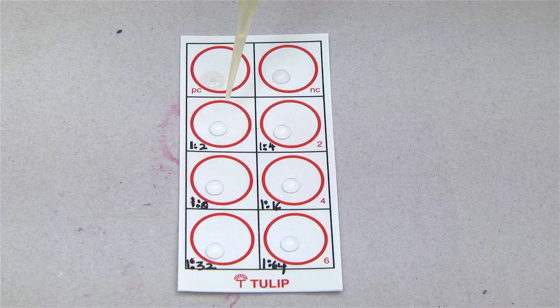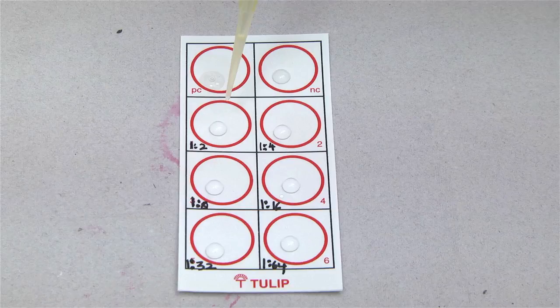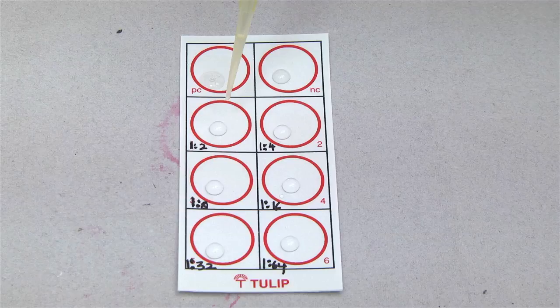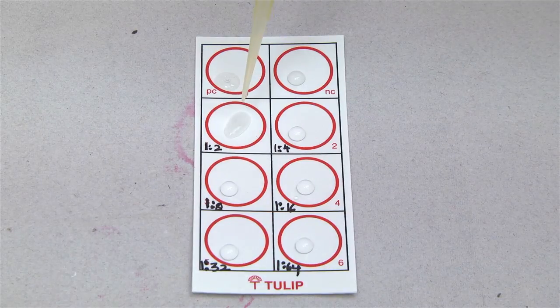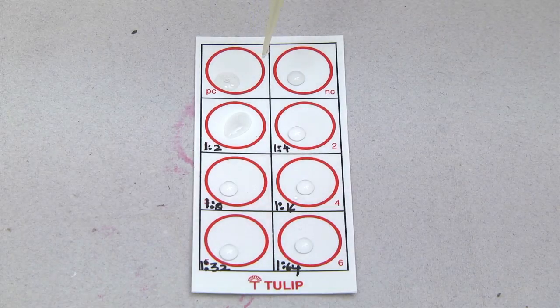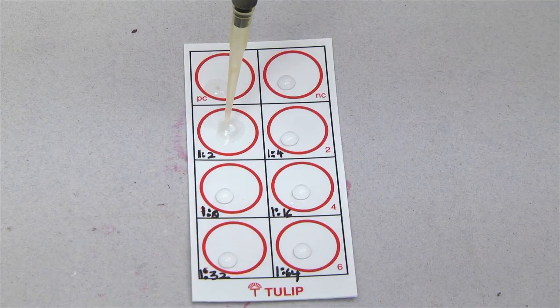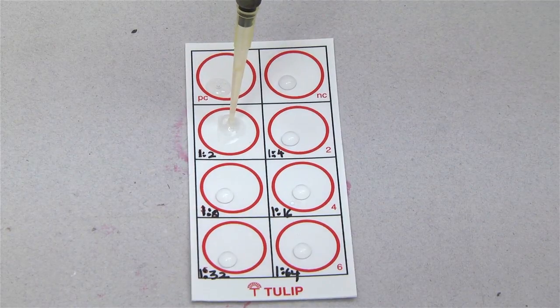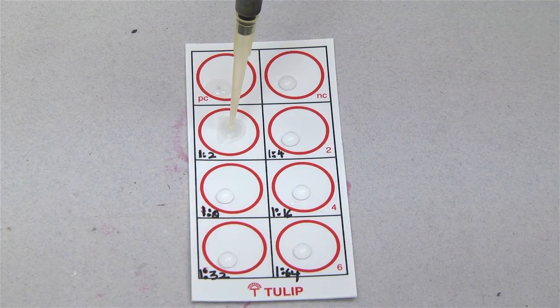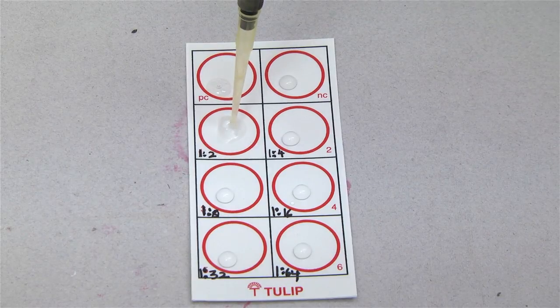Place 50 microlitres of 0.9% saline in circles numbered 1 through 6. Do not spread the saline. Place 50 microlitres of serum in circle 1. Mix the saline and serum in circle 1 by drawing the mixture up and down. This gives a 1 in 2 dilution.